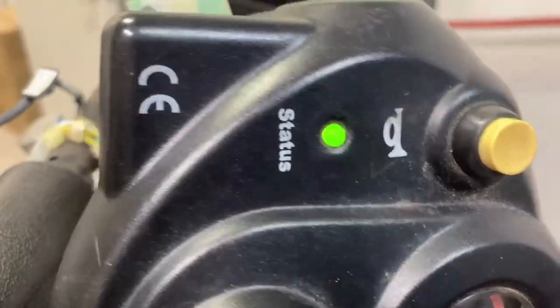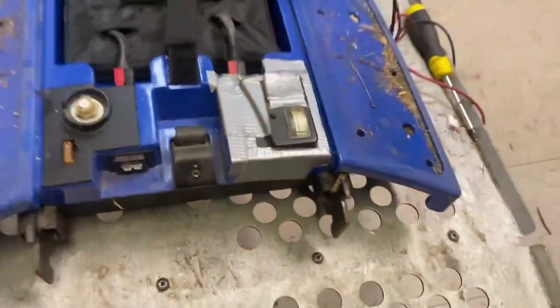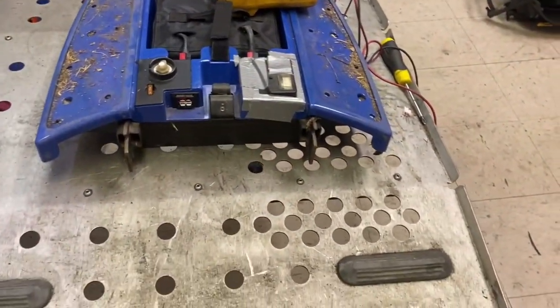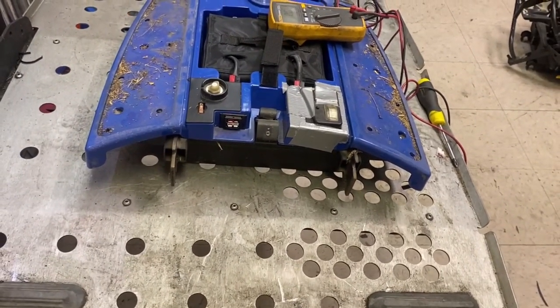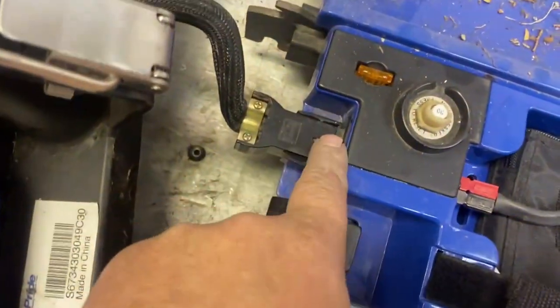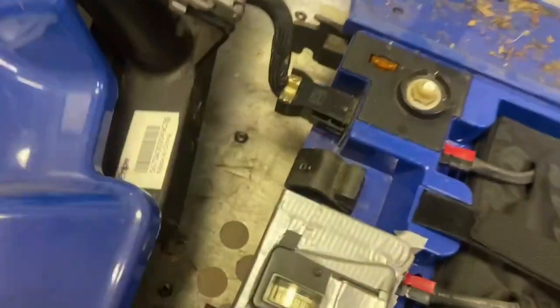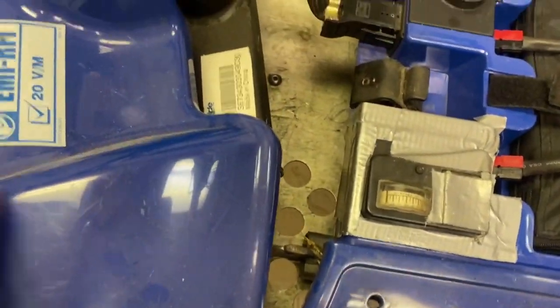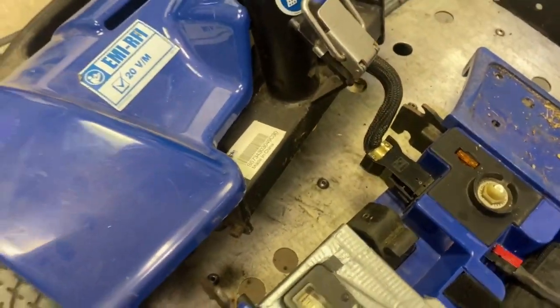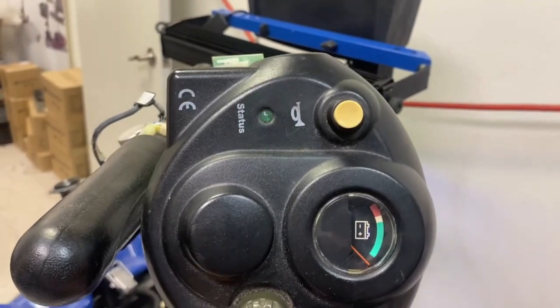With this one it's a light on older-style scooters. It's a flashing light and it's given me a five-beep code, which it would do — it always goes for the quick error because the back end isn't there, so of course there's no brake. I'll have to put the back end on the scooter just to see what the error actually is. The thing with this scooter is you don't have to reassemble the whole scooter — you can just plug the wire in through there. There's enough wire sticking out so I don't get my fingers trapped in this awful detachable back-end design. Let me reset the scooter — I've just pulled the key out and now it should give me the proper flash code.